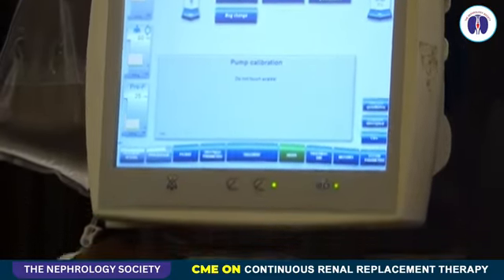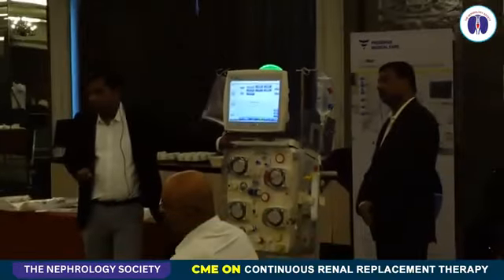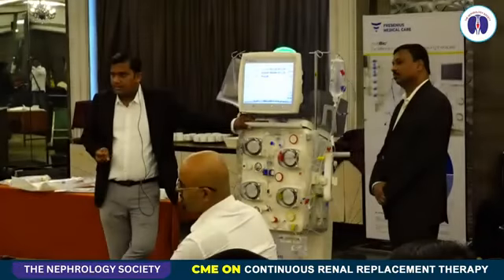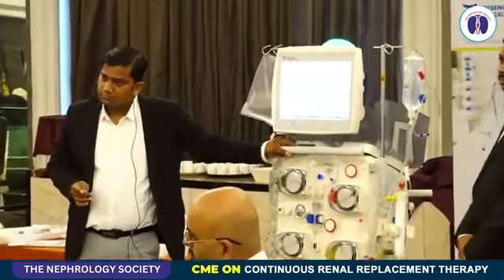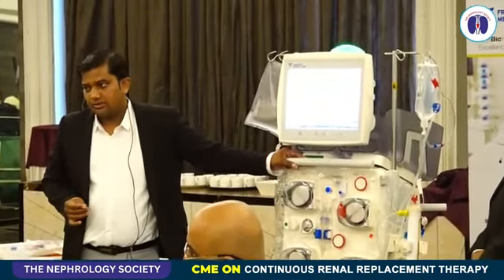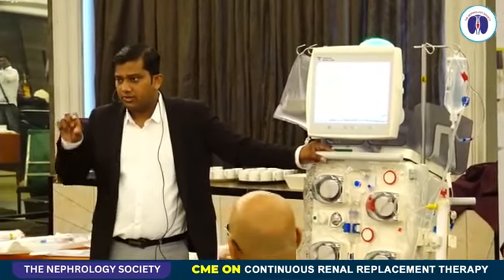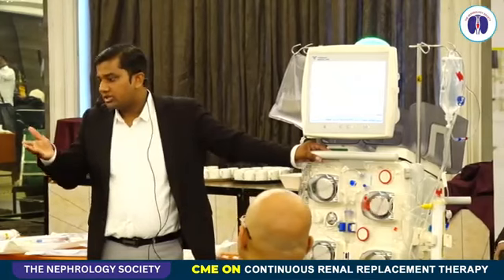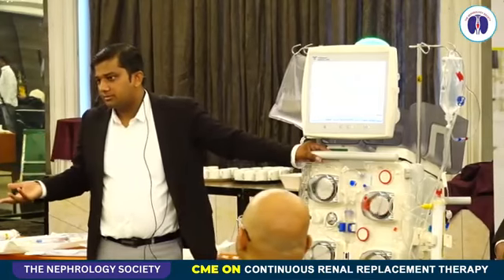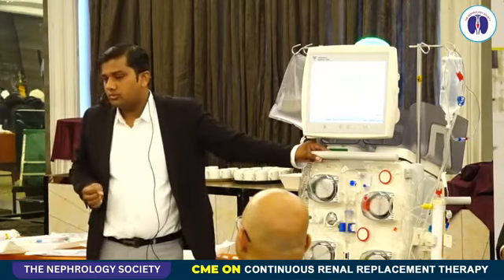What I'm asking is, we've switched from 0K to 2K, and then after a while, I want to go back to 0K. So that bag which was partially utilized, can it be reused? It can be used again. The only thing is, you have to change both the bags simultaneously. It's up to you, whether you want potassium in dialysate or potassium in substitute. It's up to you.